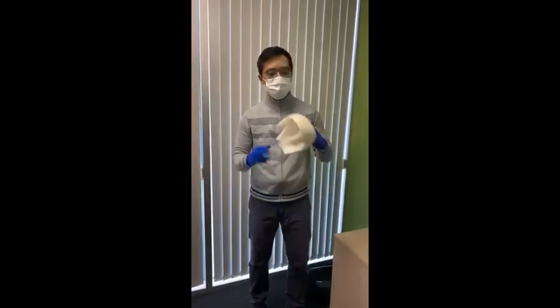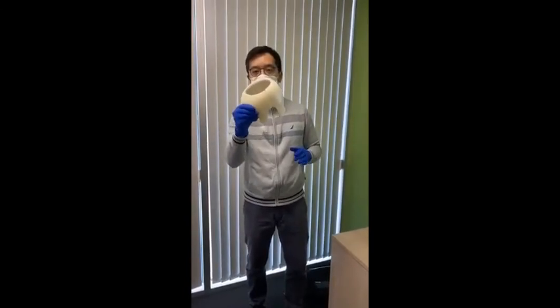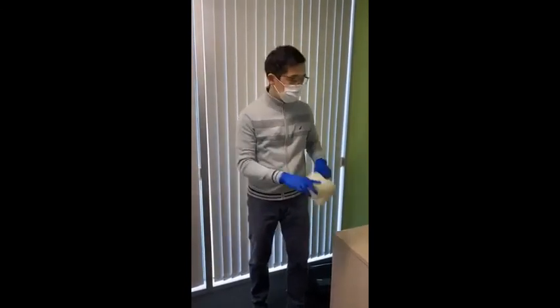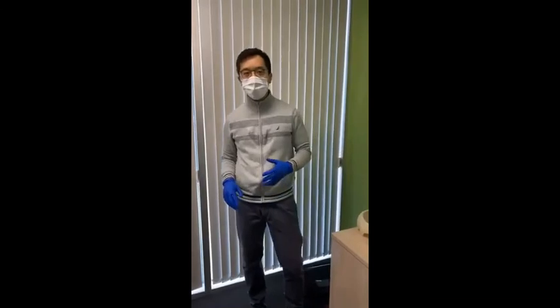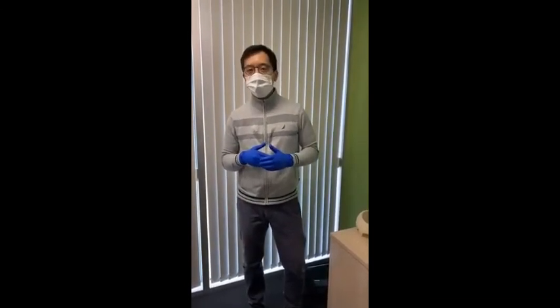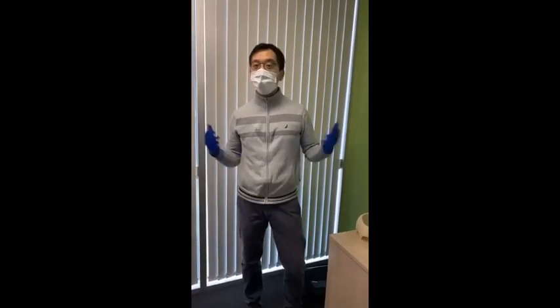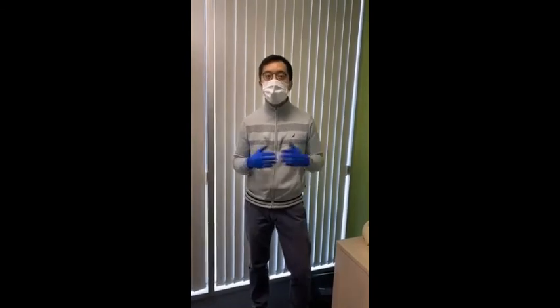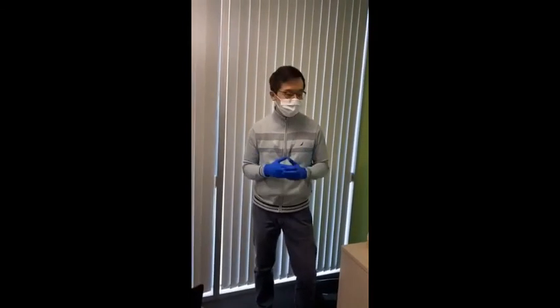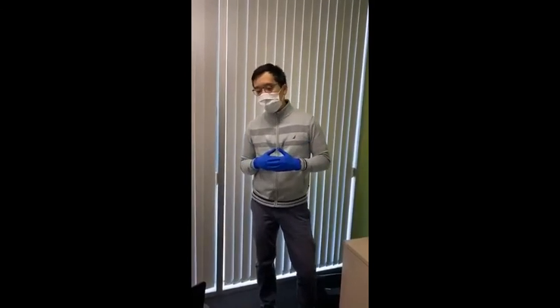And then this is an example of a cranial helmet for a child. So I wanted to take the opportunity to give you an example of those three kinds of devices. Three of a number of custom O&P, or orthotic and prosthetic devices, we can make here, and that are made in our industry globally. So I think, yeah, we can wrap things up now.